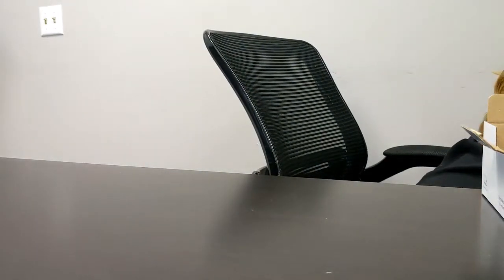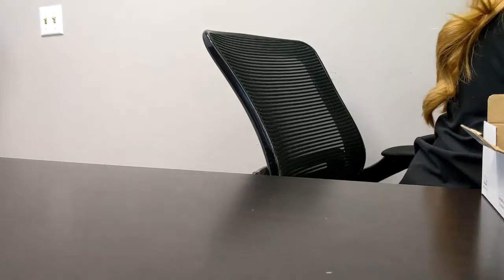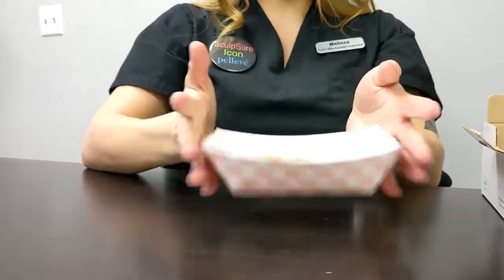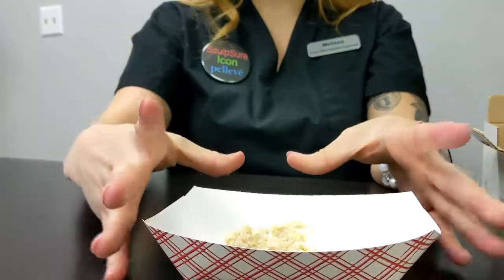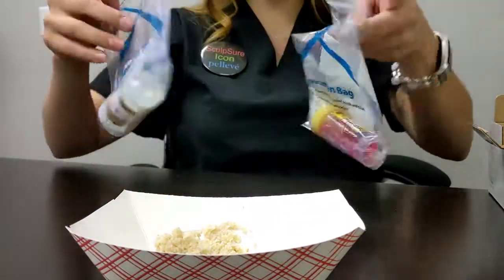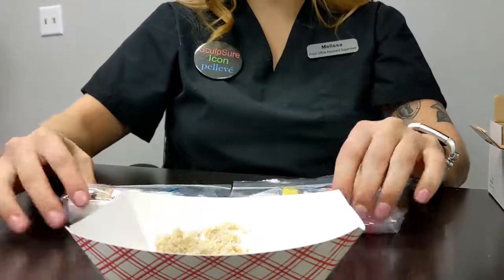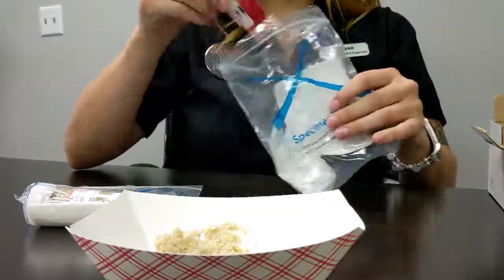Let me get an example. For the sake of this video, I'm using oatmeal, so you don't have to worry about me using real stool on this video. So say that we have a stool specimen here ready to go. What you're going to do is get both of these bags out and the ice pack. So let's start with this one first.